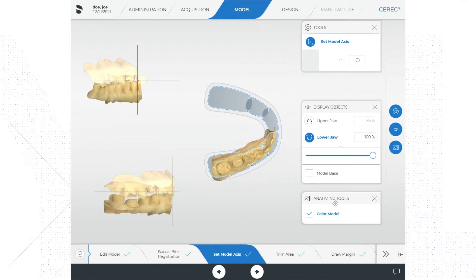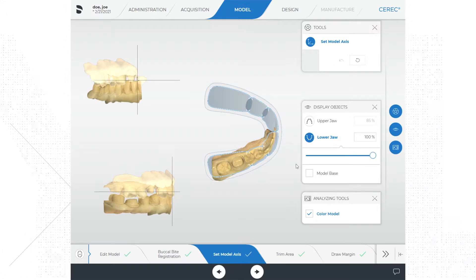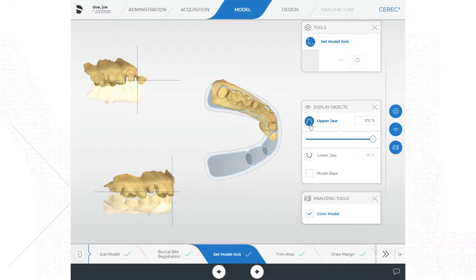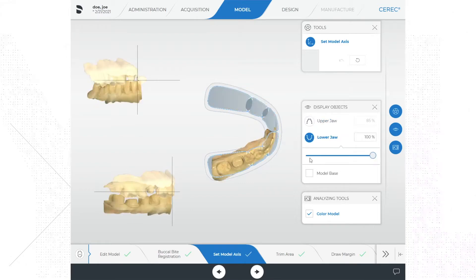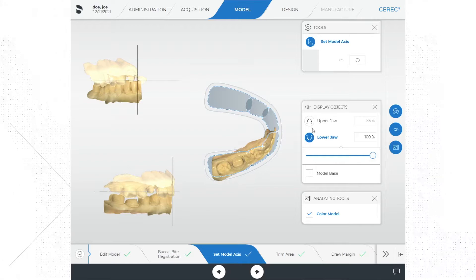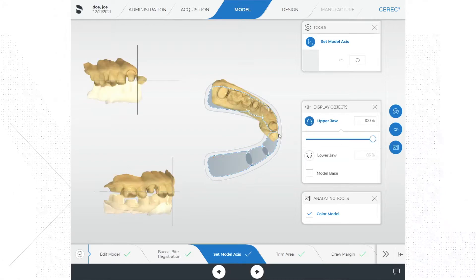Some people like to set the model axis using the upper jaw, but I personally like to use the lower jaw, especially when I am working on the lower arch. If I am working on the upper anterior teeth then I will use the upper jaw to set the model axis, but normally I use the lower jaw.